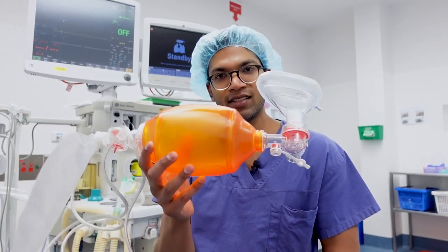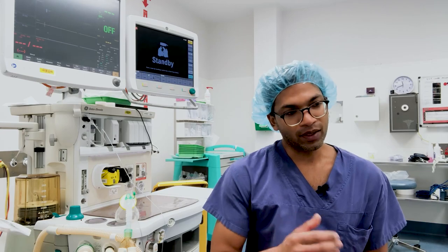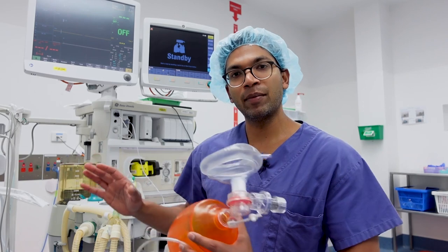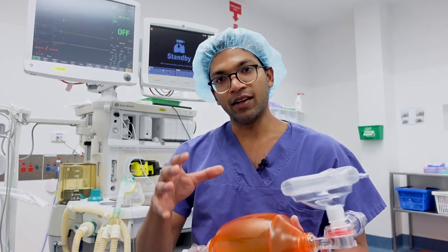You might be wondering how this simple-looking little device can possibly replace the entire machine. It's quite simple — the anesthetic machine is pretty much a device to deliver positive pressure to inflate the patient's lungs. It has a lot of additions that make it complicated and really good for safely ventilating and oxygenating a patient over a long period of time, very hands-off. I can just set my machine and monitor without doing all the ventilation myself.